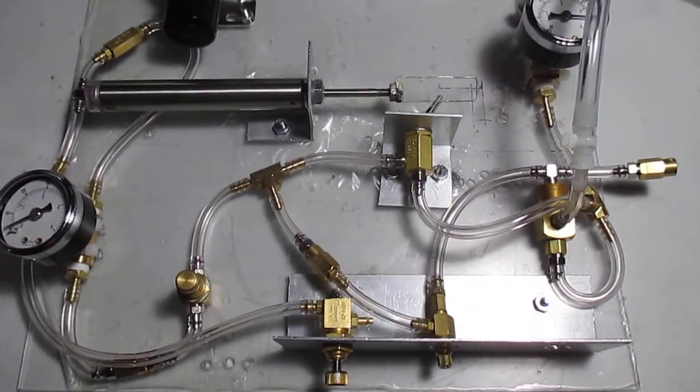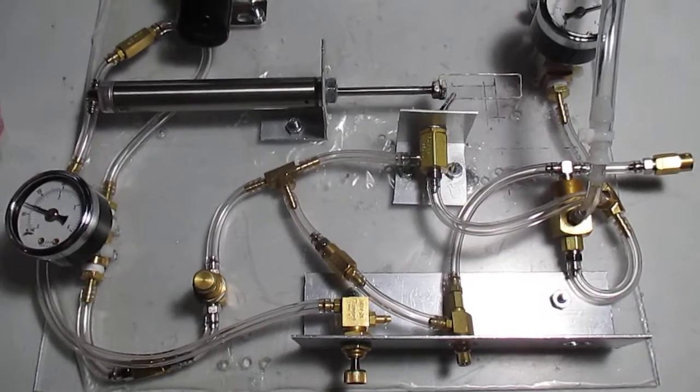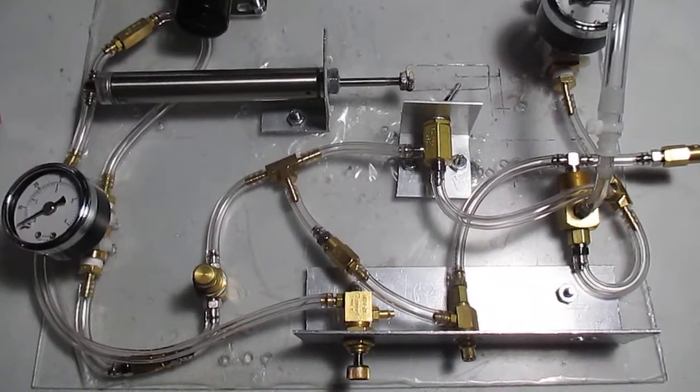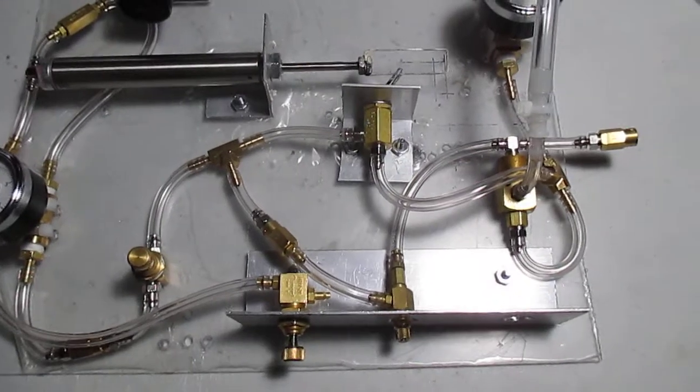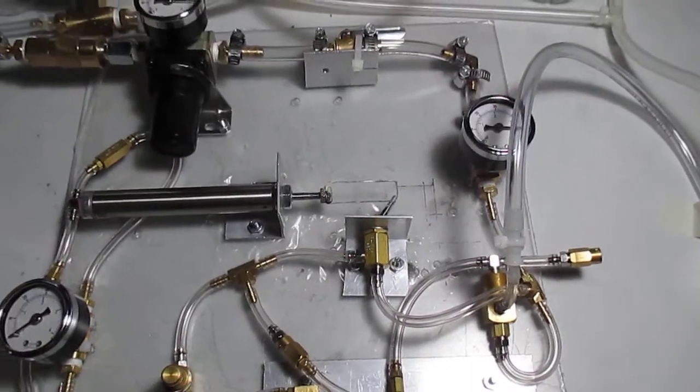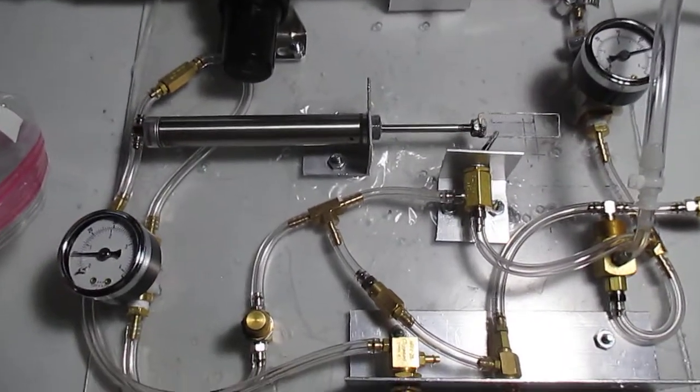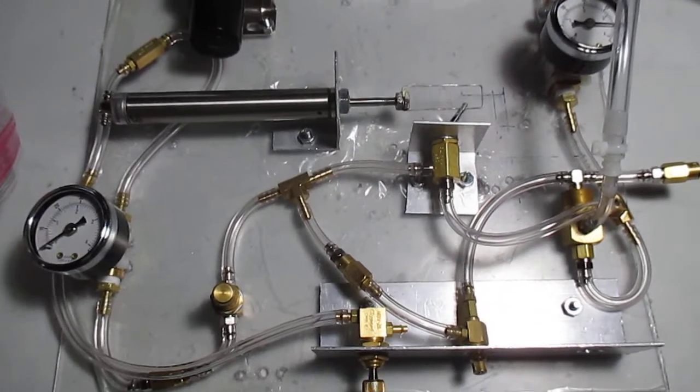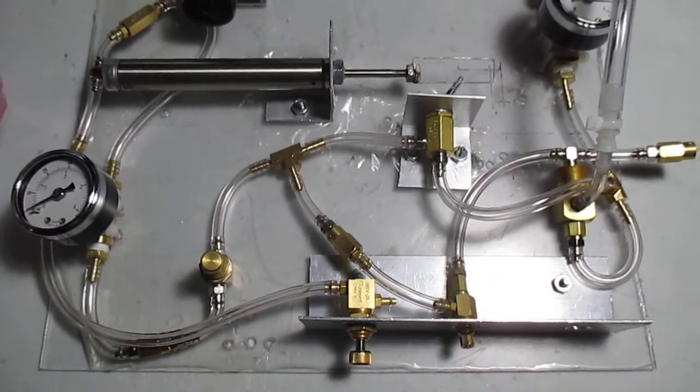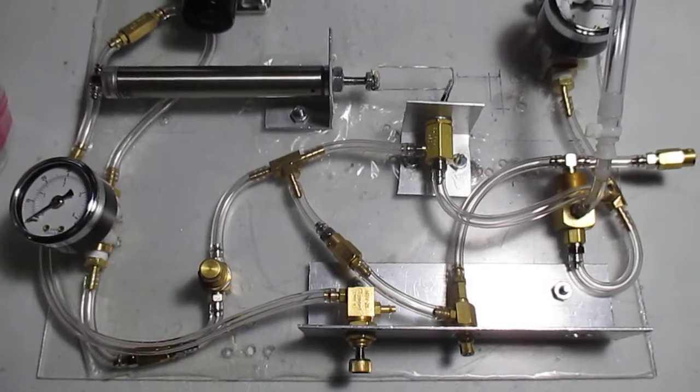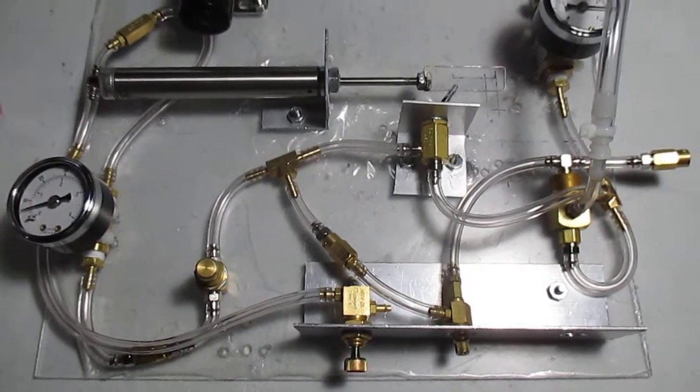This will be followed with a second 20-minute video for fine detailed descriptions of the components and their function. I am Thomas McGrane and I hope you can build my ventilator to save lives. Make it your ventilator.